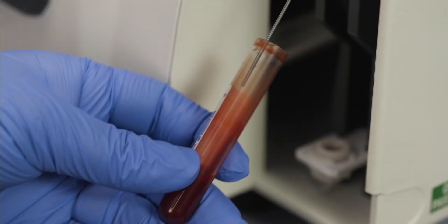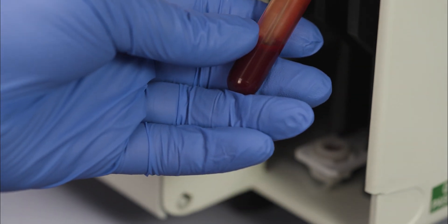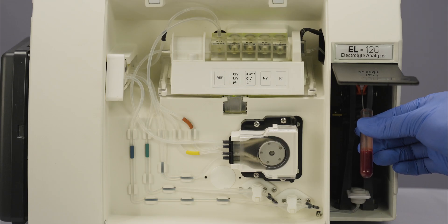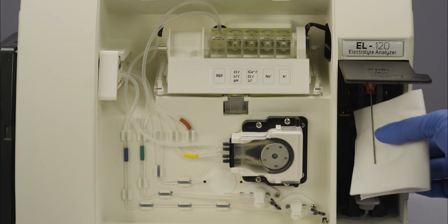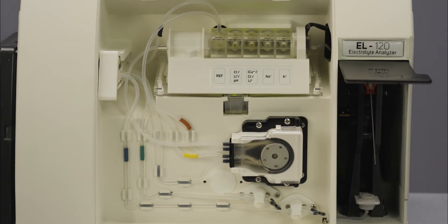One of the key advantages of our electrolyte analyzer is its lowest cost per test, offering a cost-effective solution for specific ion analysis in your laboratory.